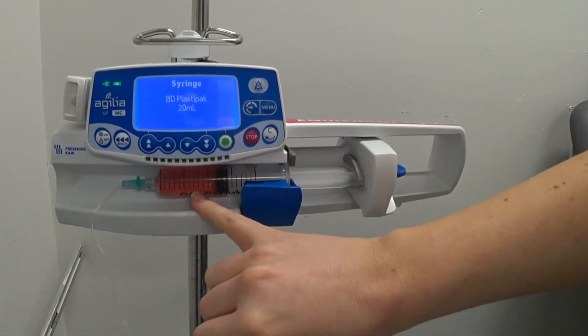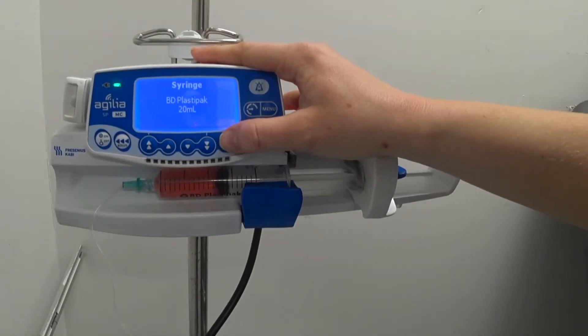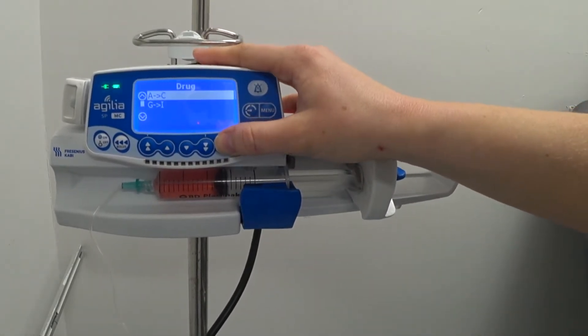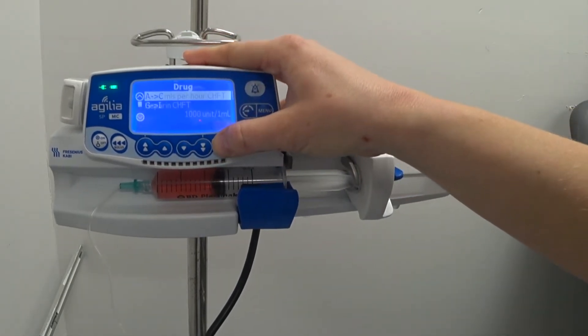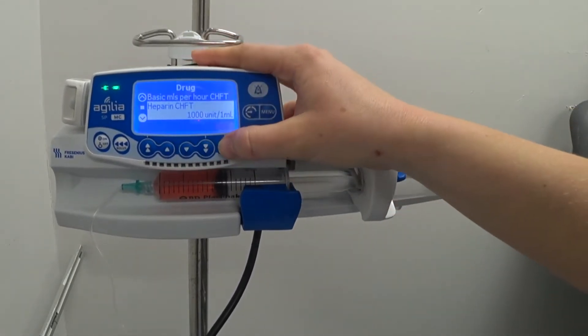You have to make sure that the syringe and the amount is correct and then you can choose your drug. We will do heparin.